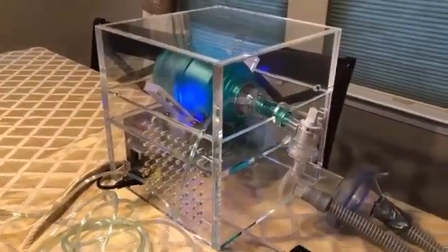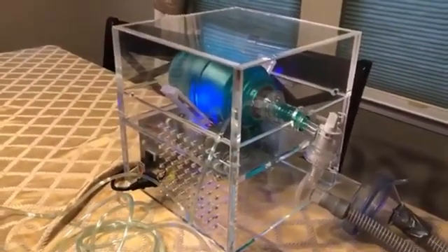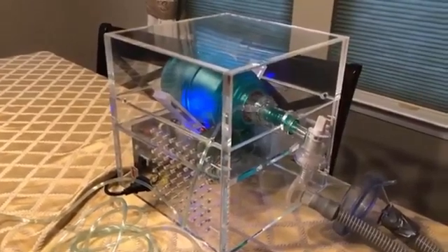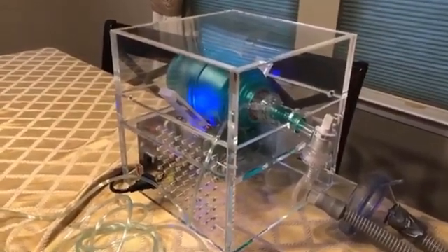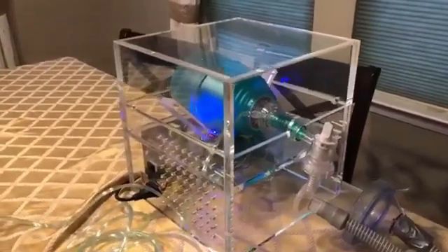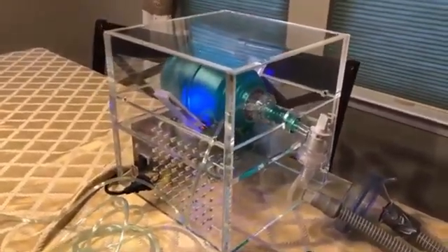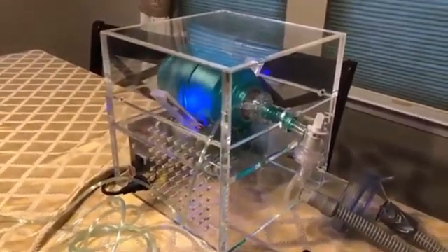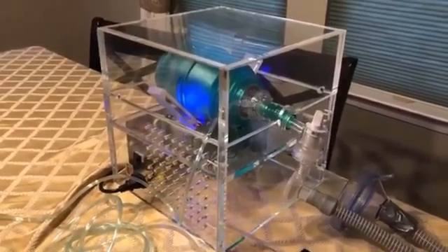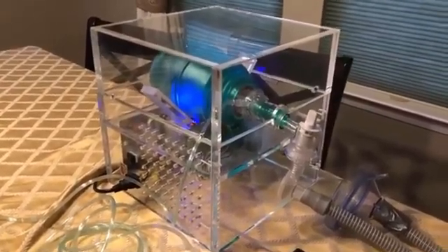We have created a mechanical ventilator. When the virus was beginning to spread, we had not had a lot of problems in the U.S., but we did have the issue.